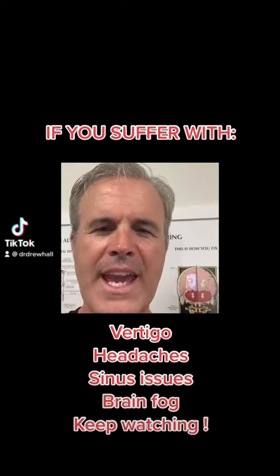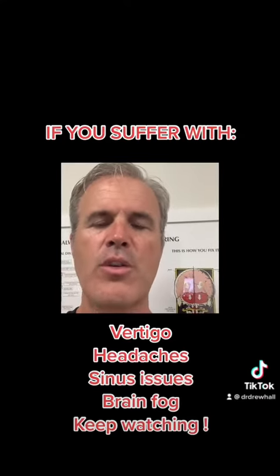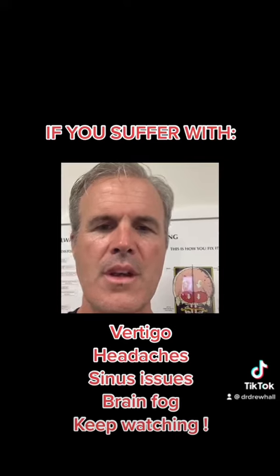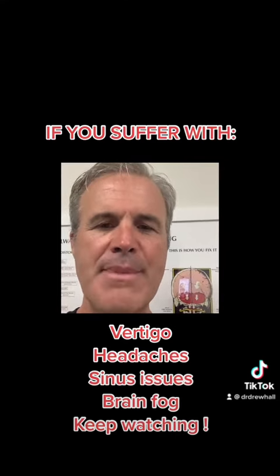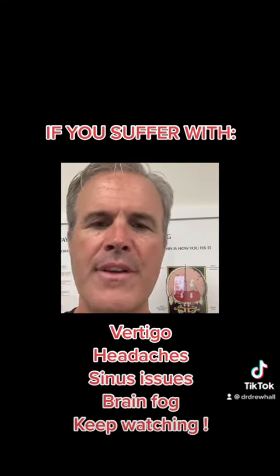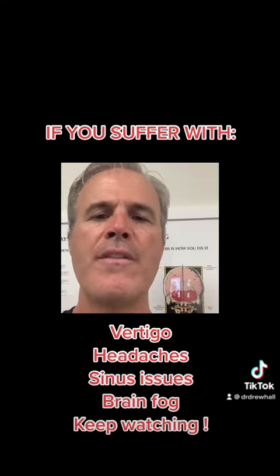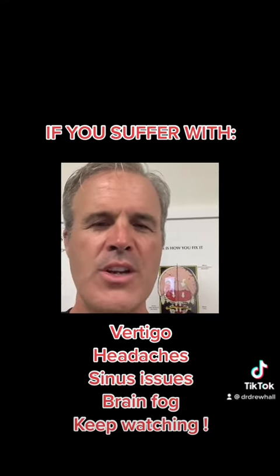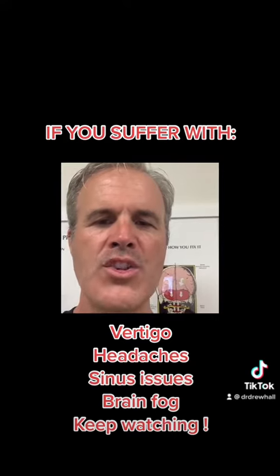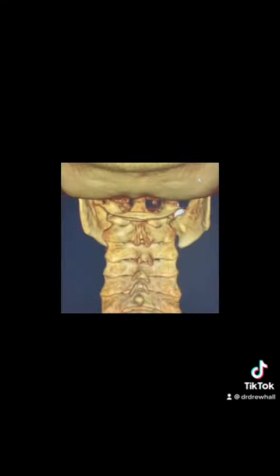Are you suffering with chronic headaches, chronic sinus problems, chronic cognitive issues? I'm going to show you a 3D CBCT scan that we use in our office from a patient that recently came in with all these kinds of conditions, and we're going to show you how and where structural issues in the neck affect the nervous system and what you can do.